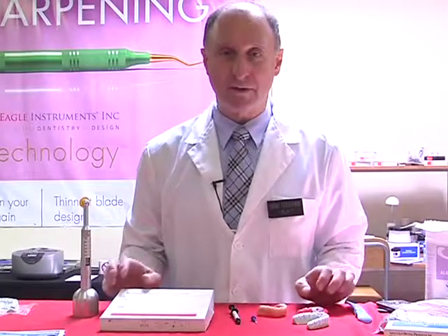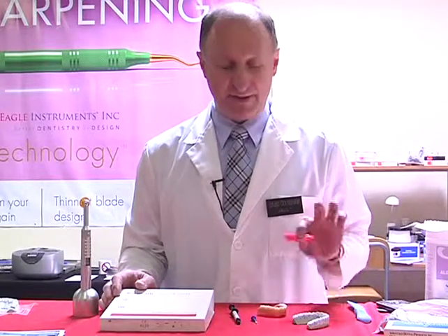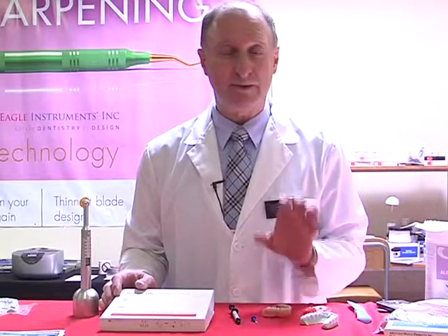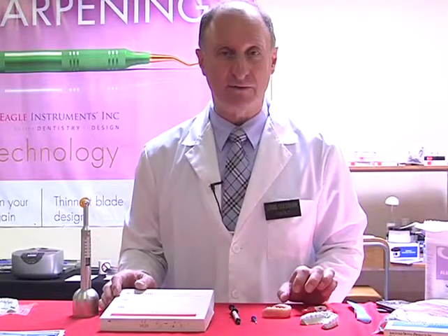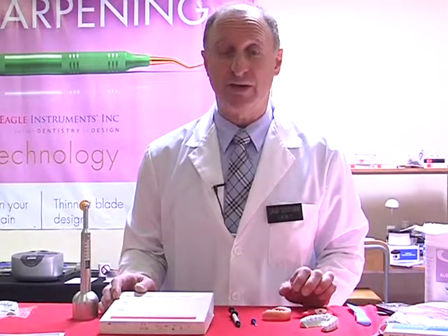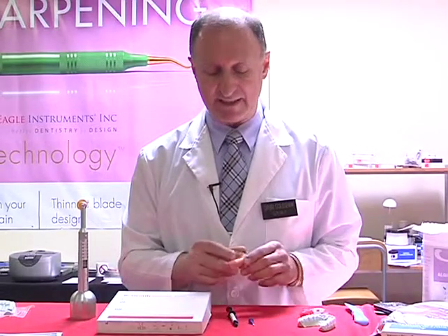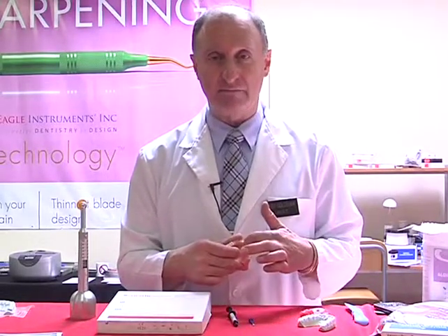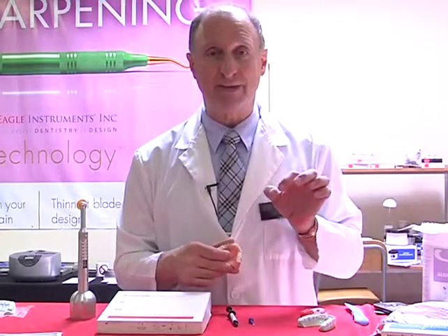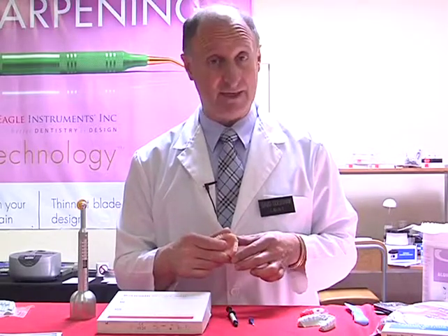I'd now like to talk to you about how to identify a mouthguard, a bleaching tray, or even a denture. I'm talking about putting information on that to personalize it for that patient, should there be a problem, allergic reaction, or whatever. Normally it's very difficult to do so. Normally we'd have to grind a channel, let's say out of a denture, conveniently, so grind it away, and then put a strip of metal imprinted with information or muslin cloth, put it back in, cold cure over. All that takes a lot of time to do.